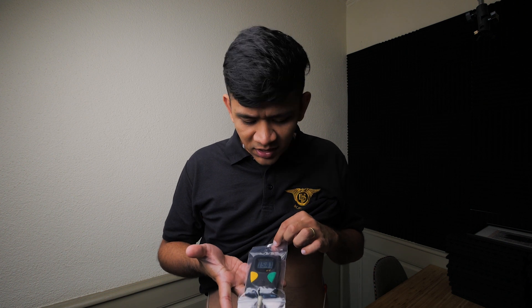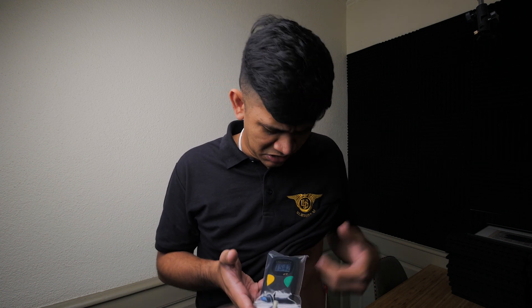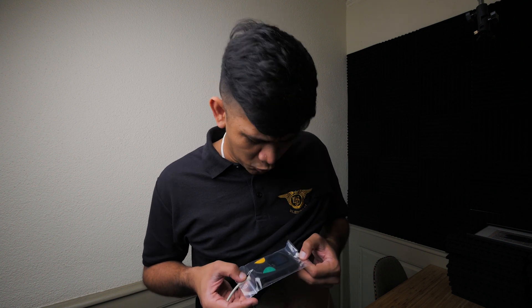Next is the lead, or wire, which connects the electrode to the third part — the monitor. The monitor is something you should technically not really touch. The monitor I got here in Germany is pretty cool — it even has the time. The reason people wear these 24-hour Holters is because the doctor wants to see how you are in your daily routines. It's a slightly more advanced form of an EKG, or as some people call it, an ECG.